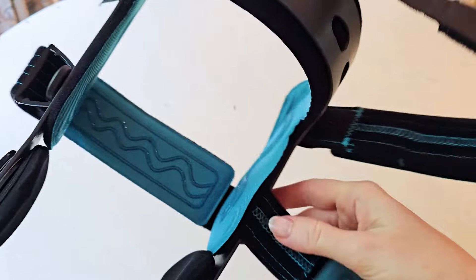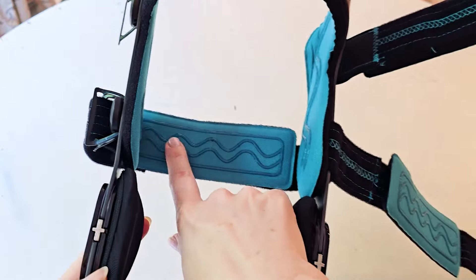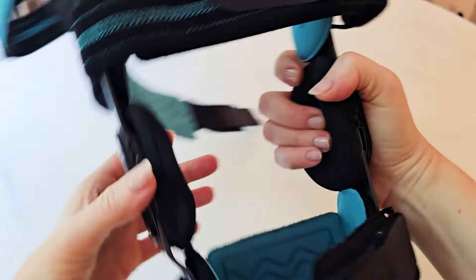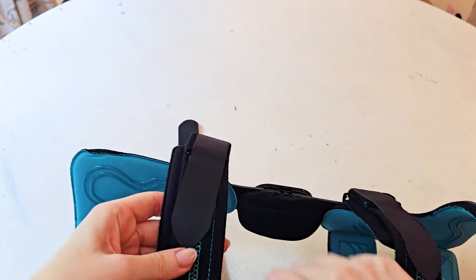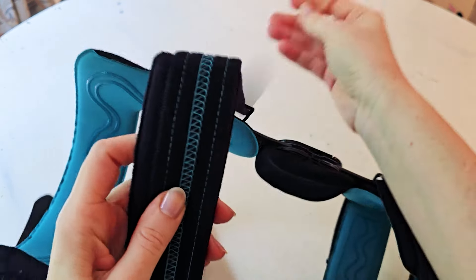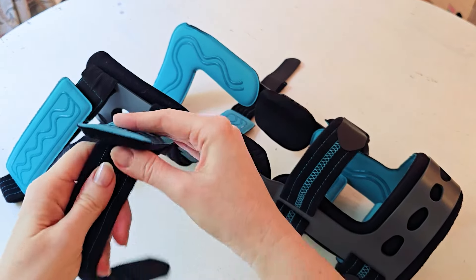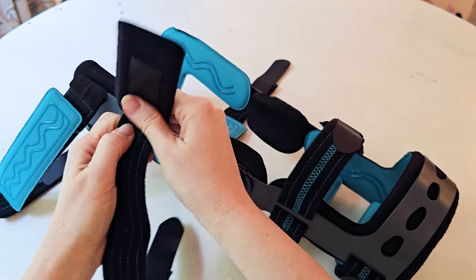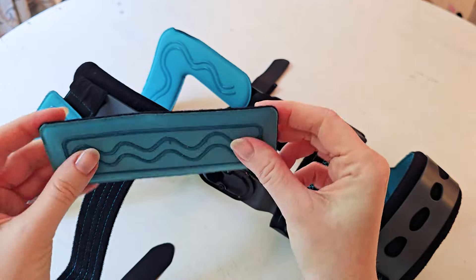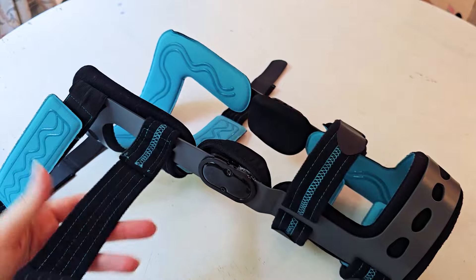The way it's structured at the top, it has a frame fitting all the way around, cupping up around your thigh at the front, and then at the bottom there's a half piece that goes around the back of your calf. That creates a structure in those two places, but other than those two metal pieces, the rest is all adjustable — you can tweak and adjust the two middle tiers, front and back.